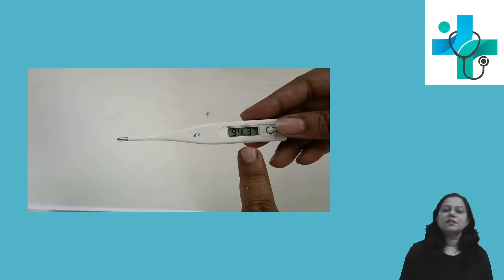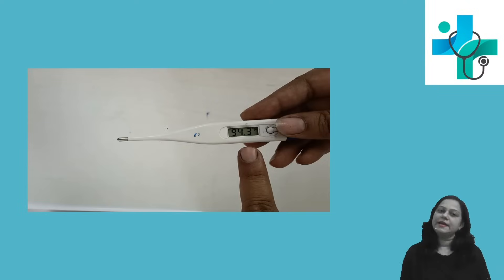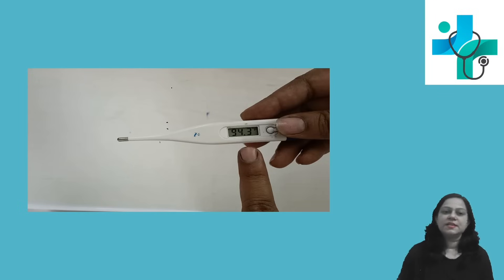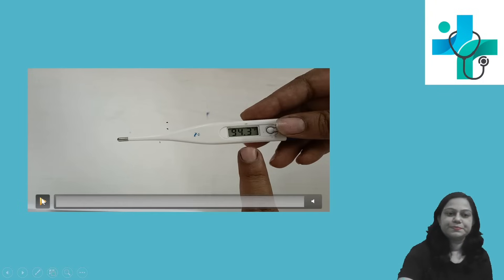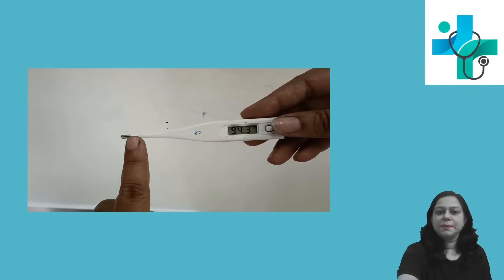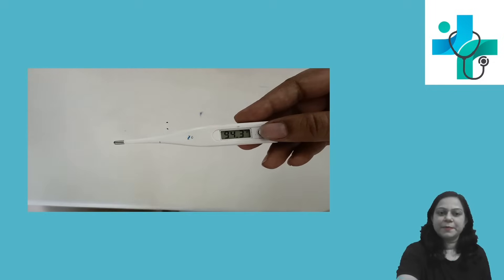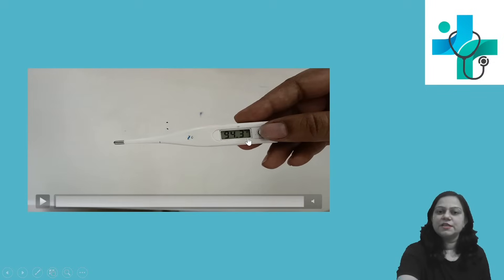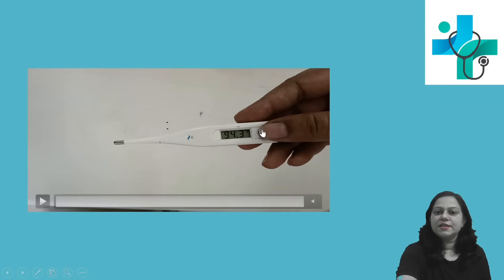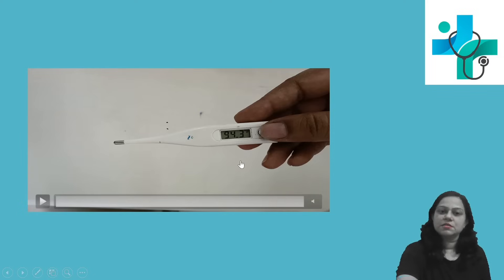This is another variety of thermometer also commonly used in clinics — the digital thermometer. See the instrument: there is a tip on one end, and on the other end there is a display where you will be able to see the recording. There is also a switch on/off button. So this is the digital thermometer.